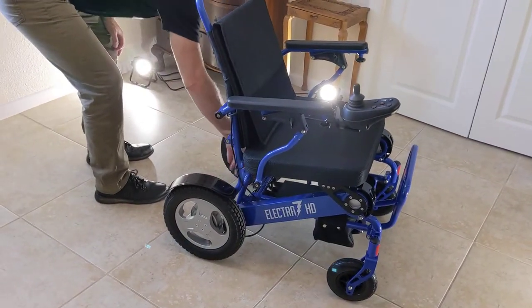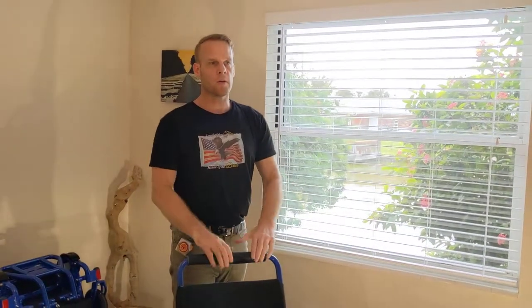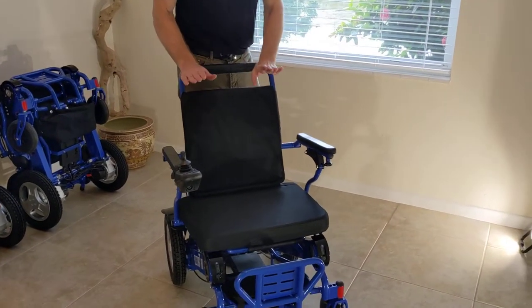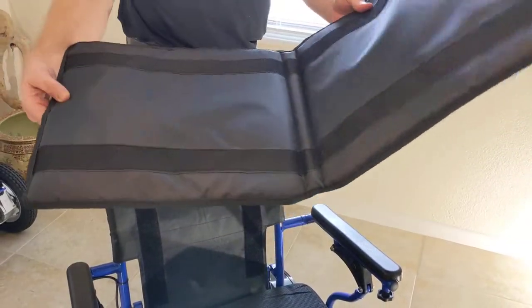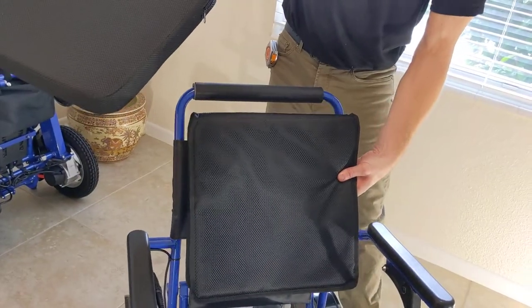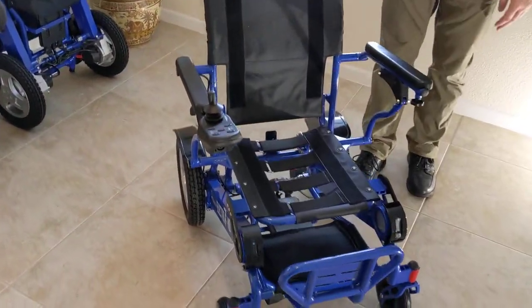This is not the first time I've made an update video about an Electra 7. This is mid to late 2020, so we're making an update video about the most recent things this chair can do. This video is intended for someone who might be freshly unboxing the chair and getting it set up. There's a little U-piece breathable fabric and memory foam in both the seat cushion and in the breathable mesh on the back of the chair.